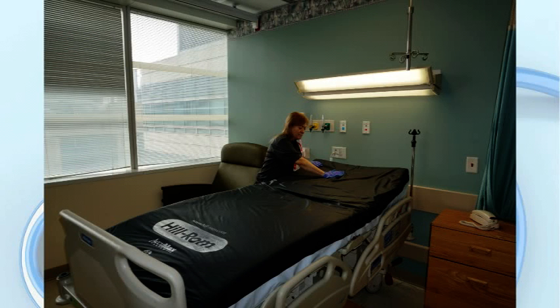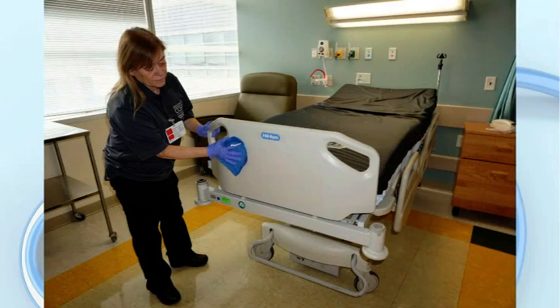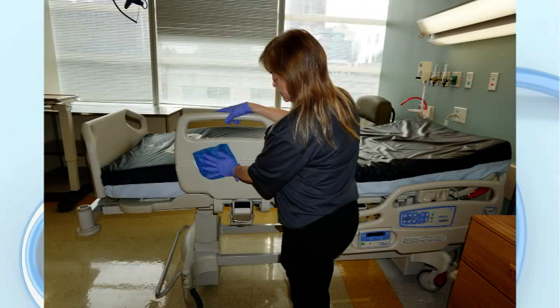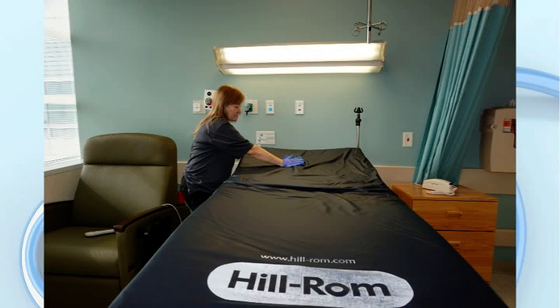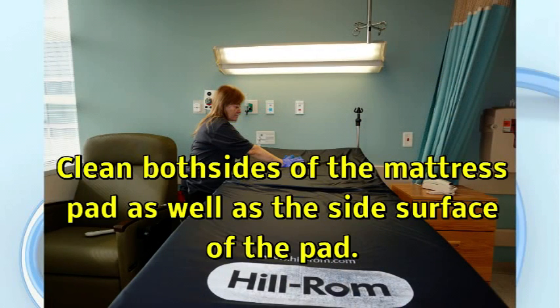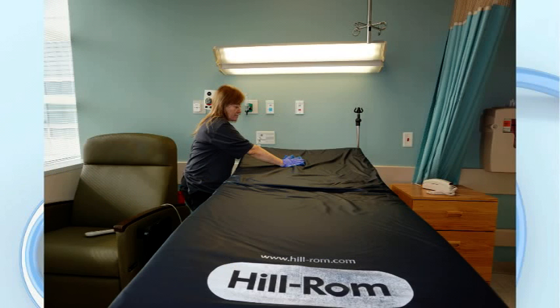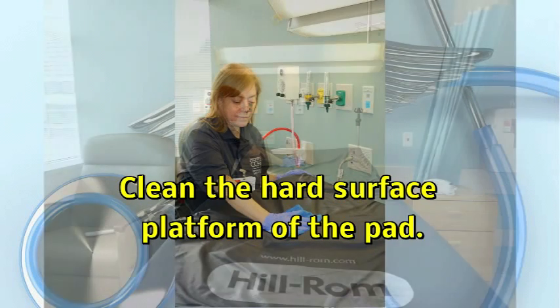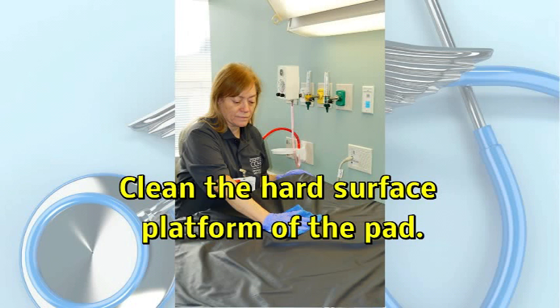Utilizing the neutral disinfectant cleaner, start by cleaning the headboard and footboard of the bed. Clean the side rails, then move to cleaning the mattress pad. Clean both sides of the mattress pad as well as the side surfaces of the pad. Move the pad to one side and clean the hard surface platform that the pad rests on. Move the pad to the other side and repeat this process of cleaning the hard surface below the pad.